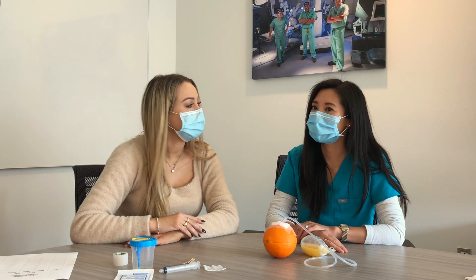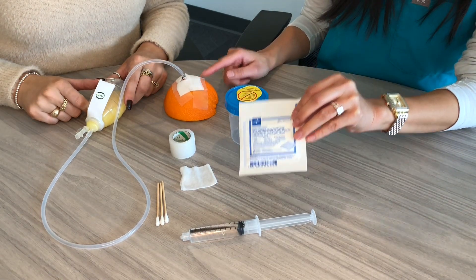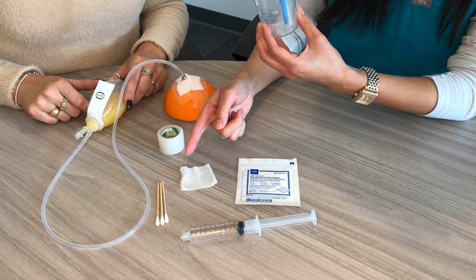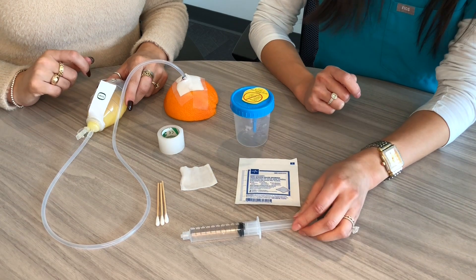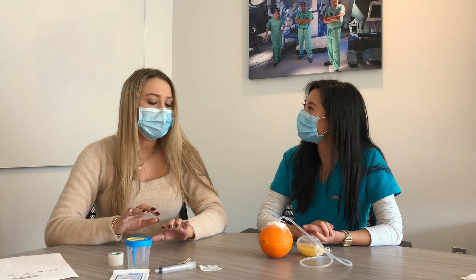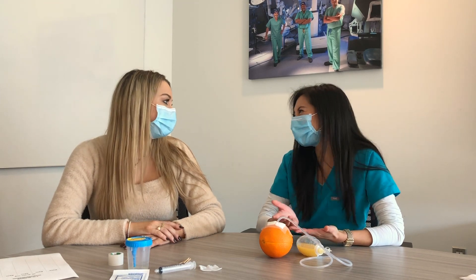What will I need to properly care for my drain? You'll need a gauze dressing large enough to cover the site, tape or Tegaderm, a measuring cup, a cotton tip applicator or swab, and a safety pin. If your team wants you to flush the drain, you'll also need some normal saline flushes. These supplies should be provided at most hospitals, so make sure you double check before you leave. If they are not provided, they're relatively easy to find from stores.